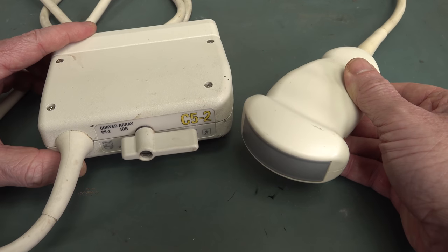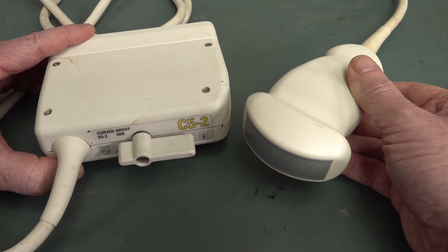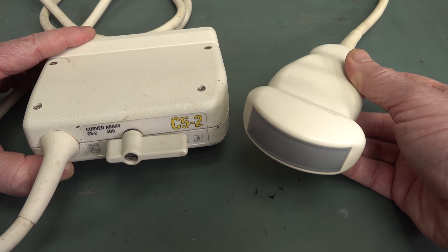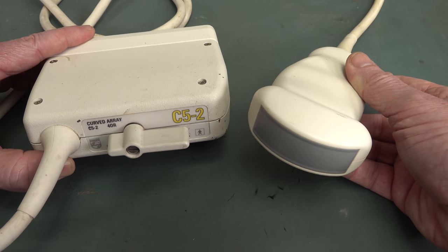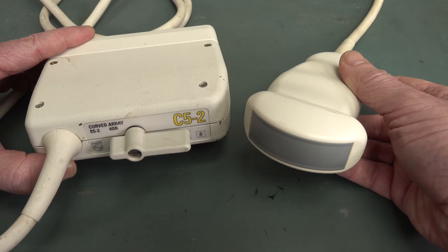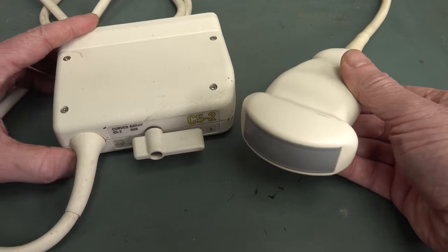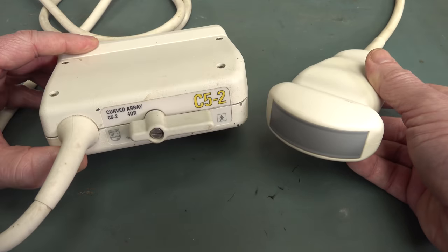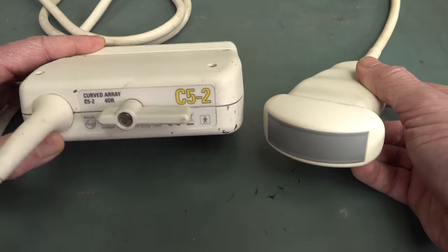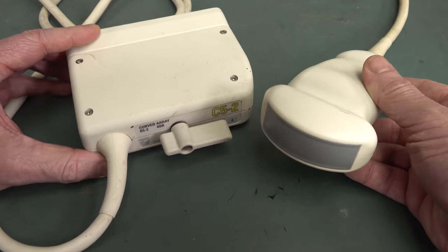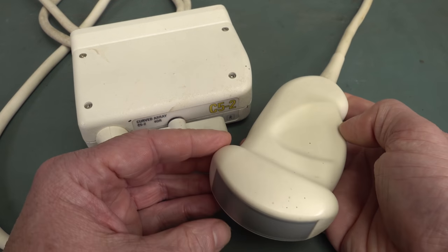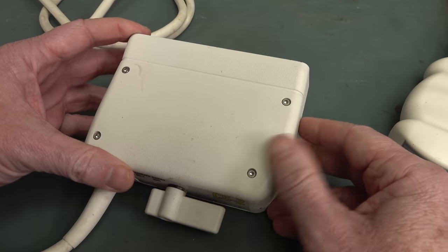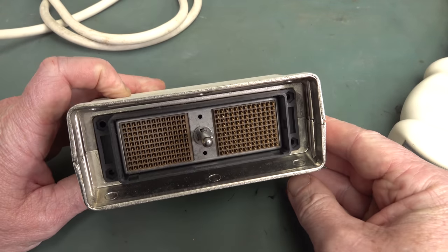The new one can penetrate up to 30 centimeters depth, and this particular type of probe is actually used for abdominal diagnosis - abdominal injuries, gallbladders, lung injuries, things like that. They also come with USB connectors now that plug into newfangled tablet-type devices so you can use them in the back of ambulances, in the field. You don't need to haul around this big 200-kilogram ultrasound machine. This looks like a sealed unit - might have to get the Dremel out. But this puppy has some screws, so tear-down time.